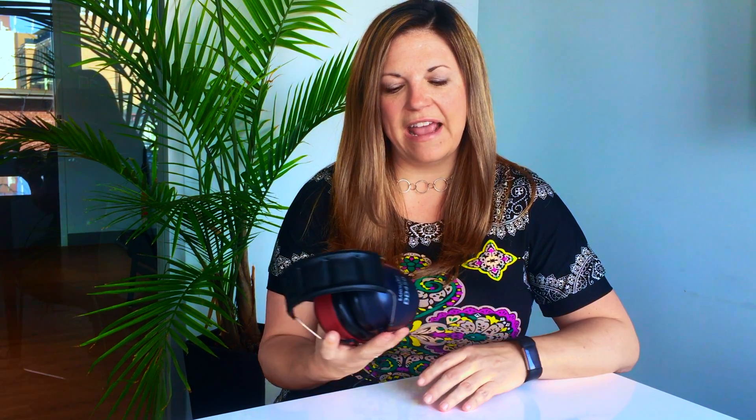One is that it is an effective passive noise cancelling headset, which means that its form factor has been optimised to block out ambient noise, which is very helpful when you're trying to test hearing.